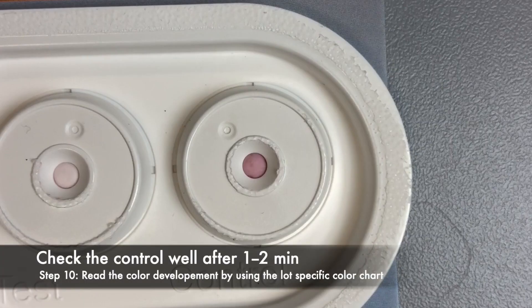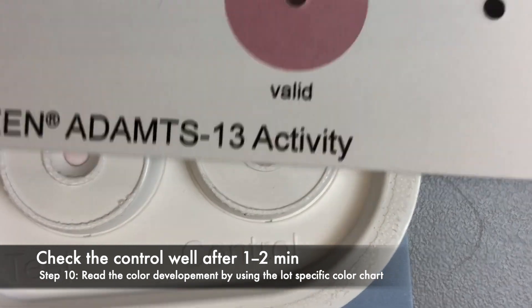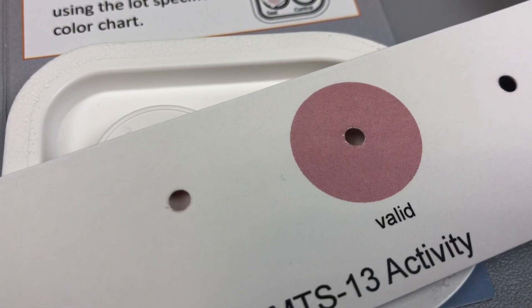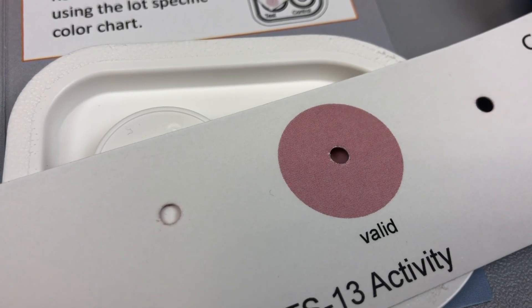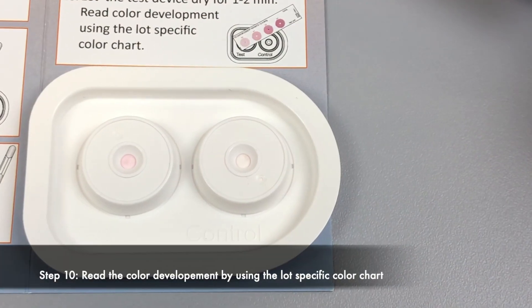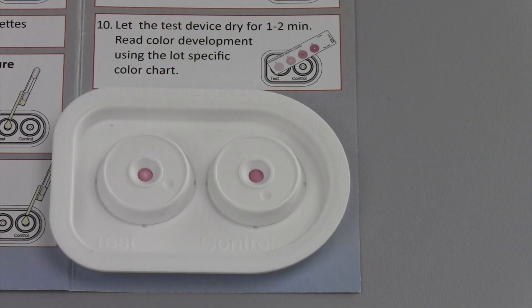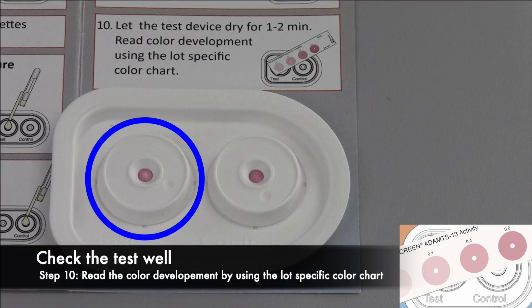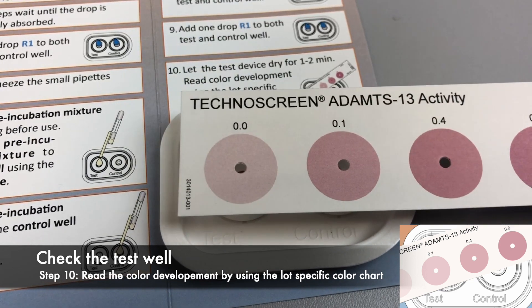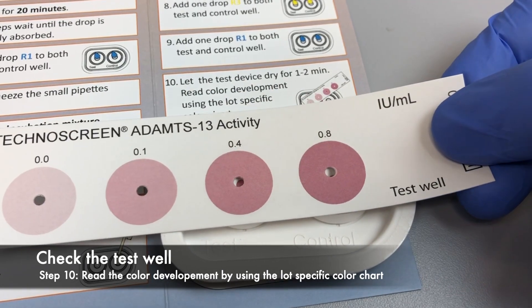After 1 to 2 minutes, the test can be evaluated using the lot-specific color chart. First, the successful performance of the test needs to be confirmed by the color development in the control well. If only poor color development is observed, the test is not valid and should be repeated. Then, the color development of the test well is analyzed. Use the flip side of the color chart and select the color closest to the test well. The results are given in international units per milliliter.